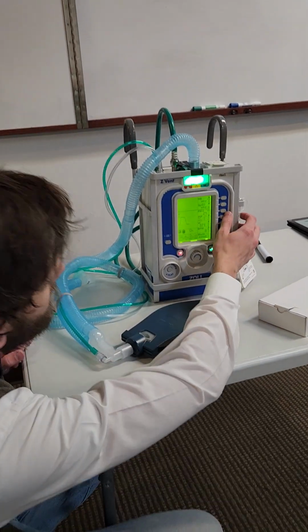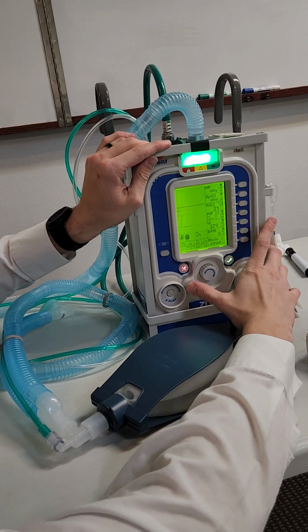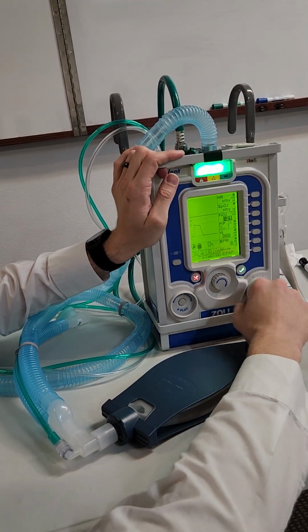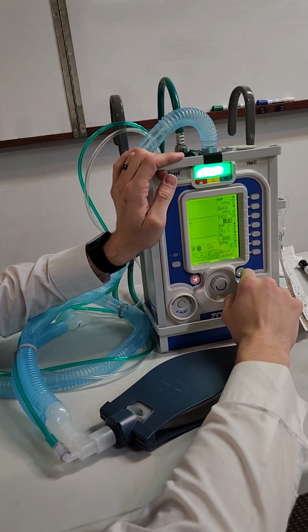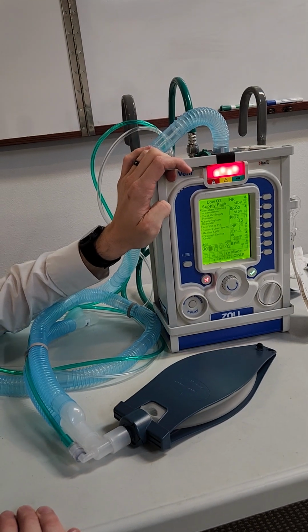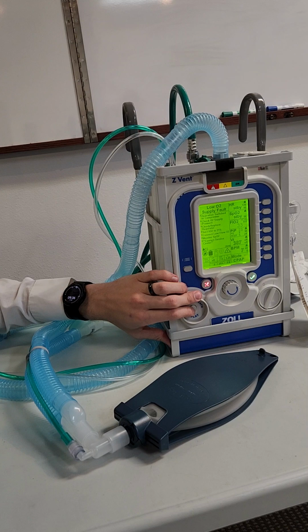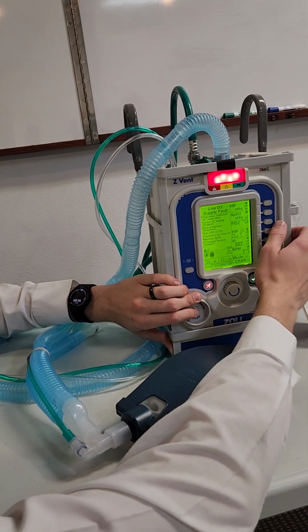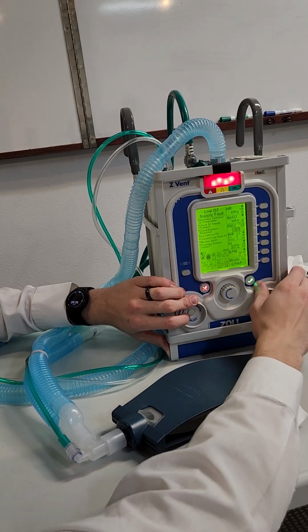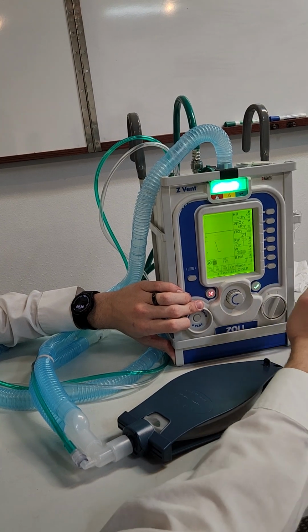Underneath that, we have FiO2. So if you click, the whole point of this vent is it's a click, turn, and accept. So I'm going to click FiO2, I'm going to turn it to what I want it to be, and I'm going to accept it. Now it's going to give me an alarm. It's going to say, well, we can't suck in any more oxygen because we don't have an O2 tank attached. Because you put too much FiO2 on. Yep, I turned it up. So if I put it back to room air, it goes away.